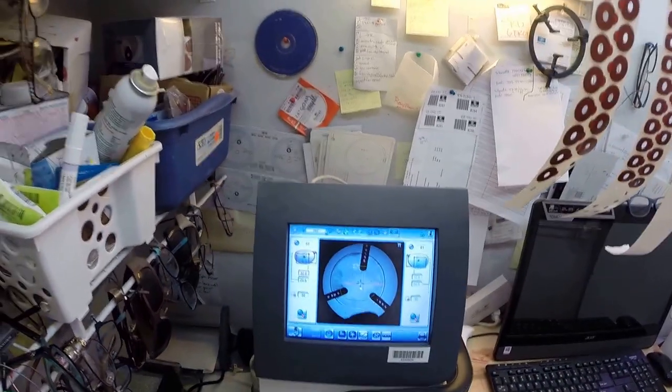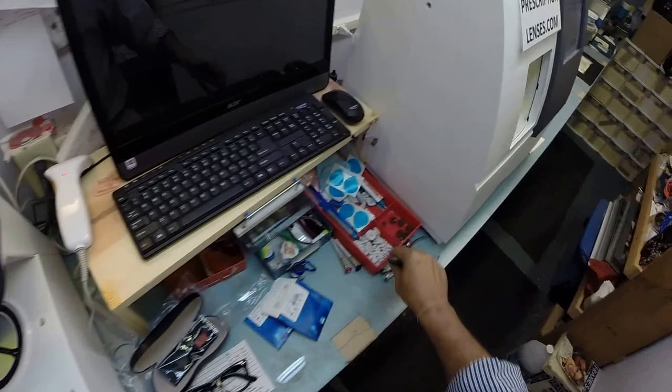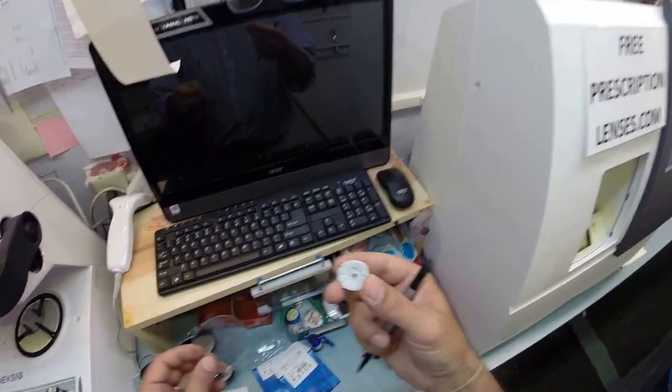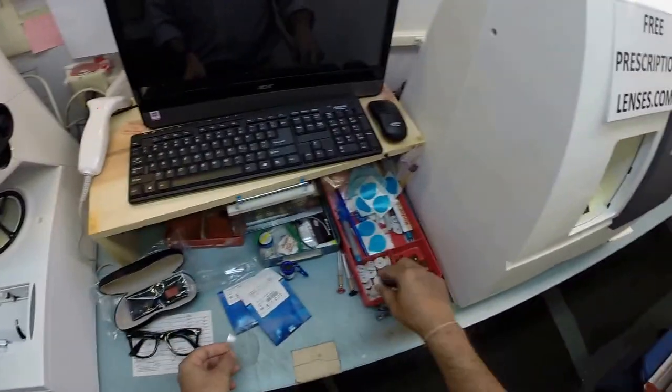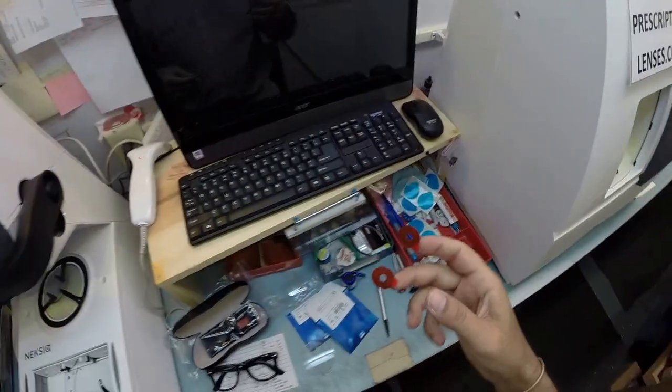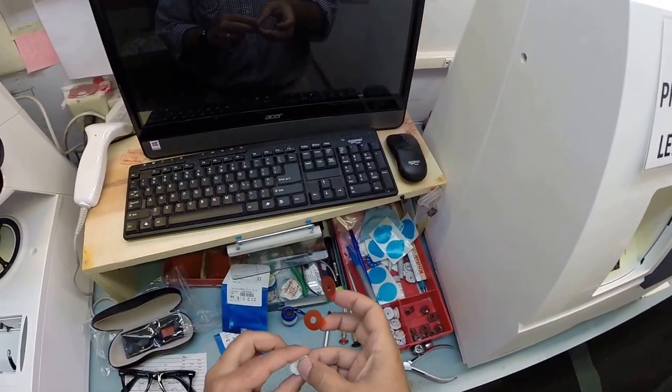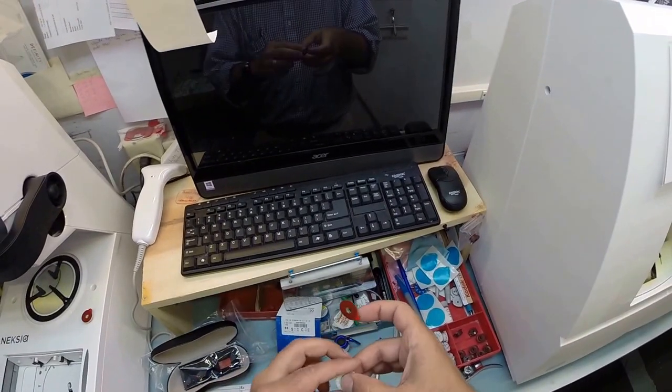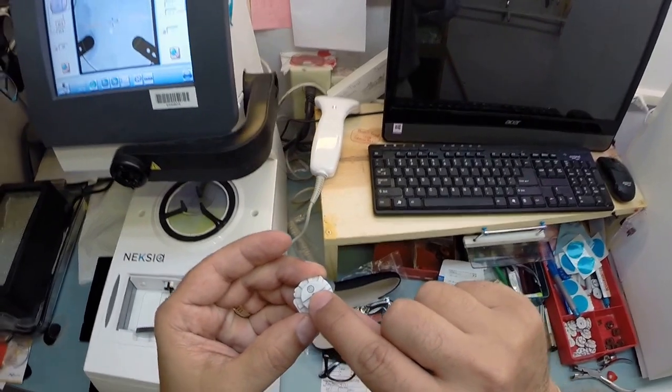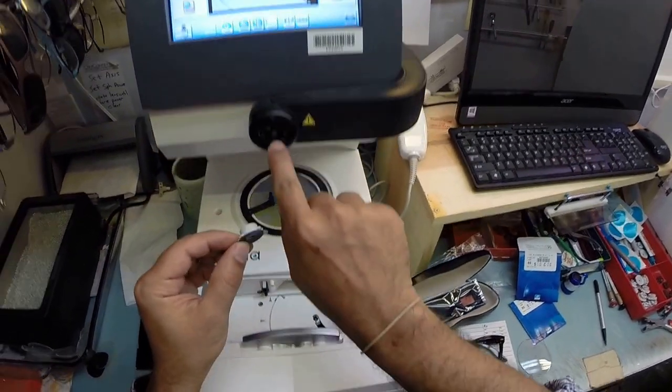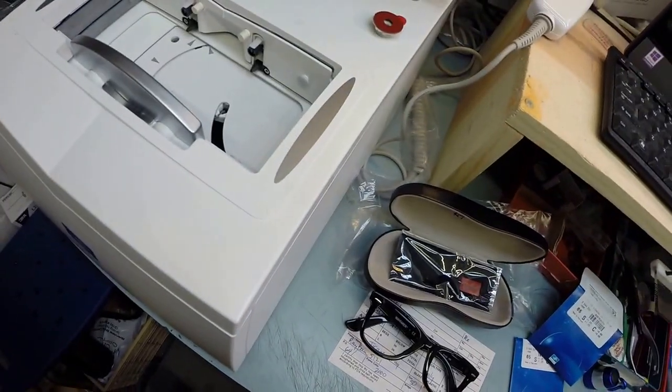But let's take your right lens, put it onto the platform. The reason I put that dot on there, let me magnify everything back up, is that's going to go directly in front of your pupil. That is the optical center. So this is the block, or as I like to call it, Jenny from the block. My wife loves those JLo movies. But I'm going to, that's right, honey, I'm talking about you. But I need to attach this to your lens while it is cutting. So I need a double-sided adhesive sticker of which, hey, wait, I've got two of those, right? Yeah. As we say here in the dirty South, the black side is the sticky side. So I'm going to take two of these. Did I already lose one? I think I might have. So put the sticker on one, put the sticker on the other one, pull the paper away to make the black side sticky again. Now on the back is a little silver button. That is a magnet. That's going to do its job twice. The first one is right now. It's going to hold it in place in the arm, attached to the magnet that is already in there. And with my wonderful stylus, hit the button, and now the block is going to be applied to your right lens.